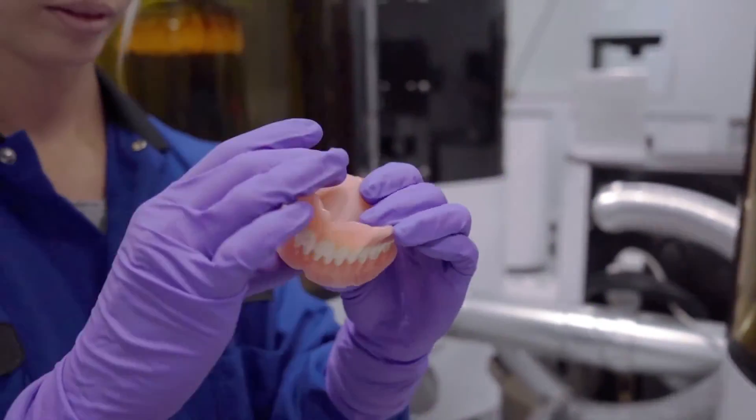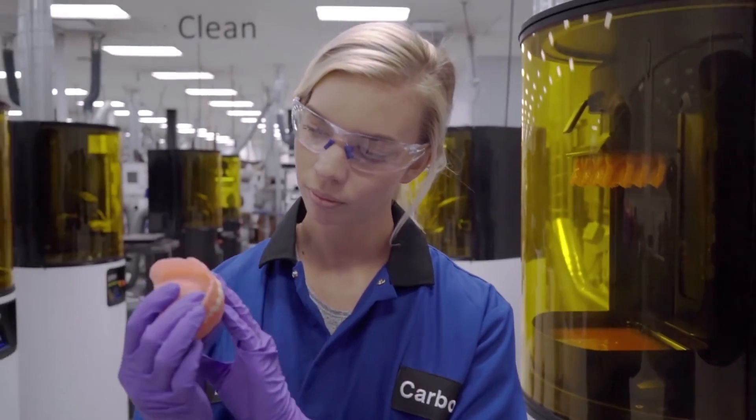The technology of Carbon allows for a beautifully aesthetic denture which looks natural, and ultimately that's what the patient wants, is something that can make them whole again.